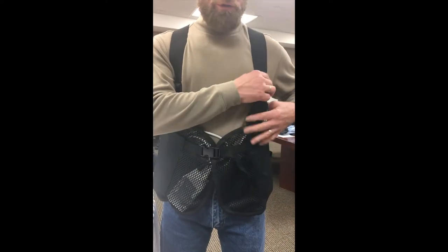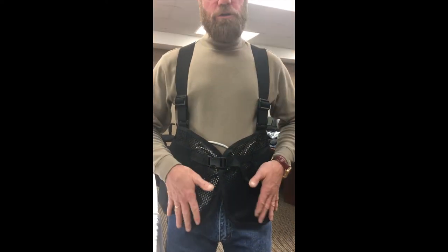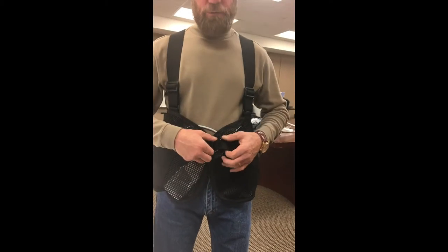This is adjustable — the shoulder straps are made of elastic, so they absorb all the weight of the LVAD. Batteries are positioned underneath the arms, you can put your controller on either side, and the waist is adjustable.